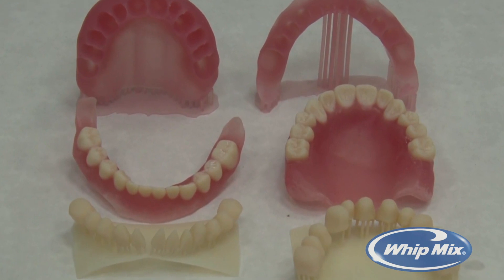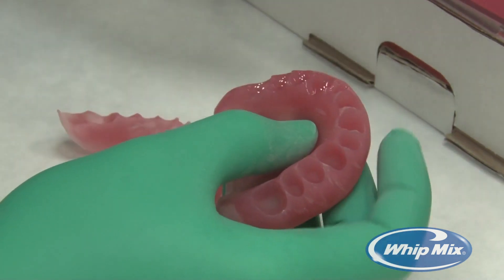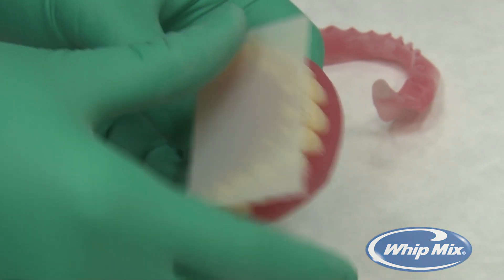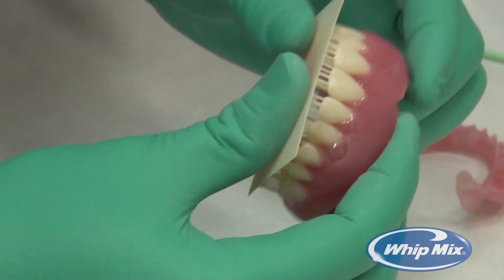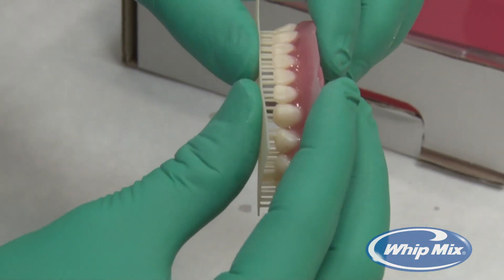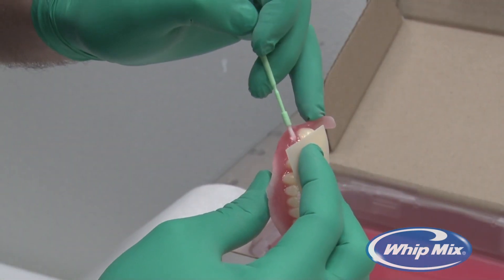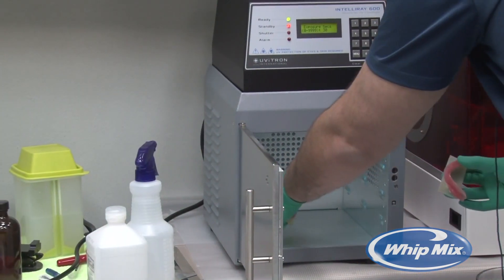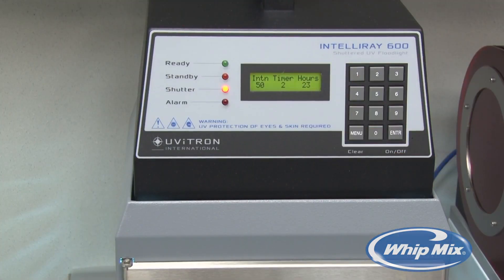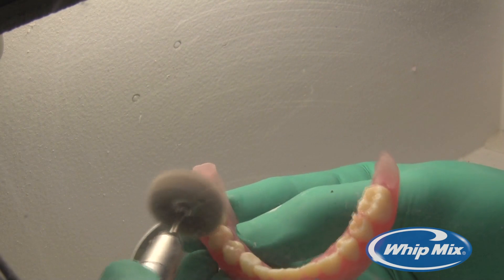The next step is to place the printed teeth into the printed denture base. First, add liquid resin to the sockets of the teeth in the denture base — this will secure the teeth when cured. Take the now-clean printed teeth with supports still attached and seat them into the sockets of the denture base. If the design and print are done correctly, the teeth should fit smoothly into the sockets. Using a fine brush, carefully fill in the necessary spaces between the teeth and the denture base with liquid resin. When complete, place the denture into the curing unit for 30 seconds to solidify the base and teeth together. Then remove the supports and use a Scotch-Brite wheel to smooth out what remains on the teeth.